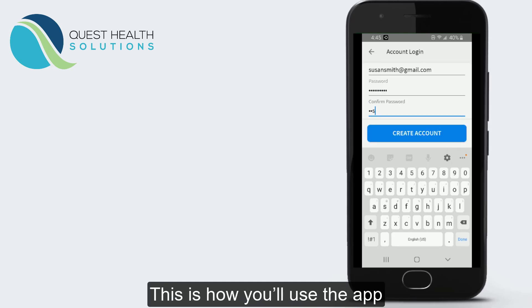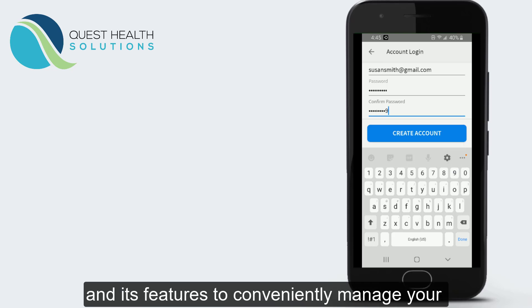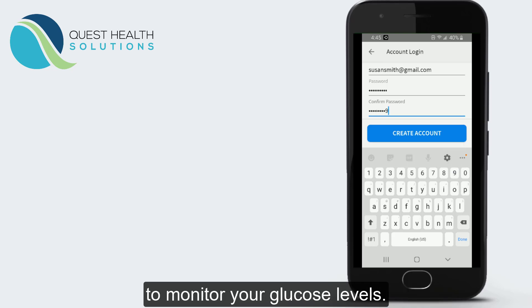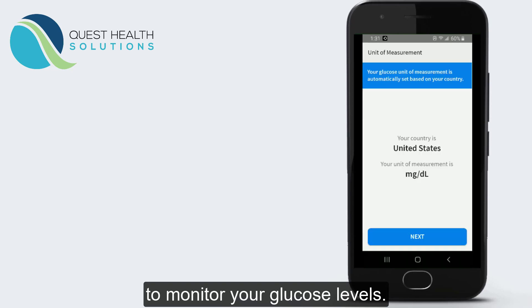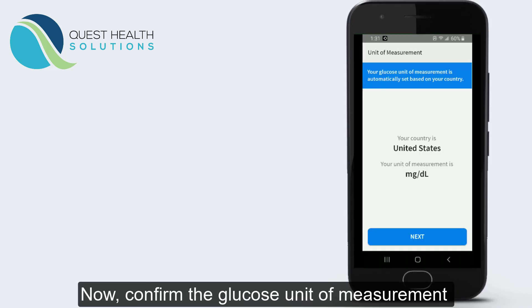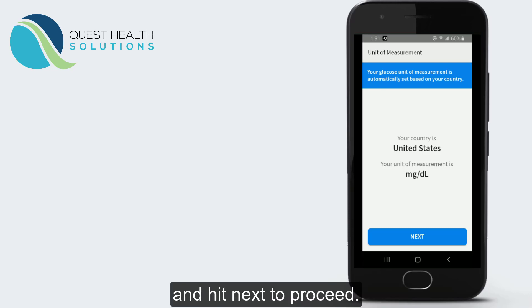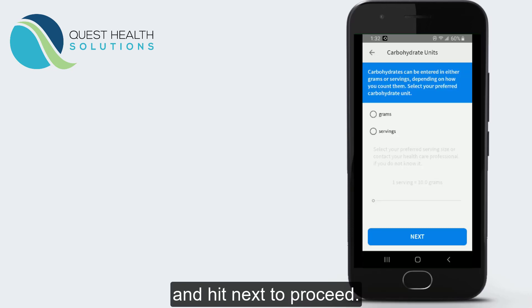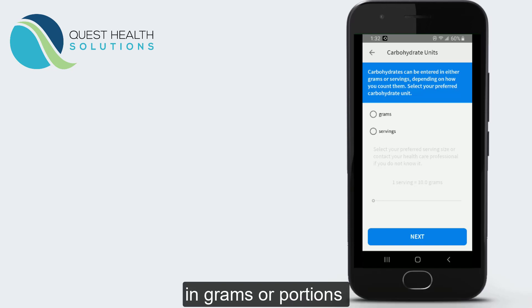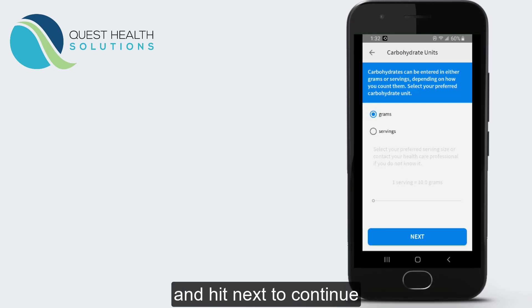This is how you'll use the app and its features to conveniently manage your diabetes and allow your care team to monitor your glucose levels. Now, confirm the glucose unit of measurement based on your country of residence and hit Next to proceed. Then select how you count your carbohydrates, in grams or portions, and hit Next to continue.